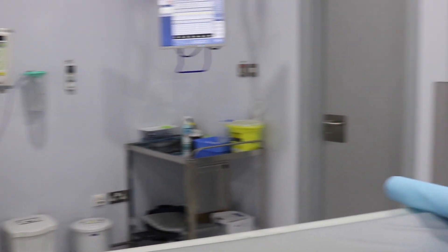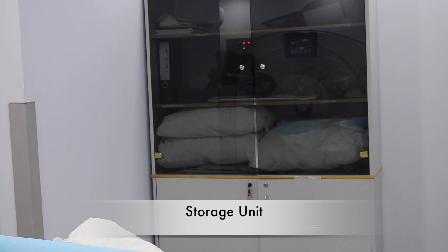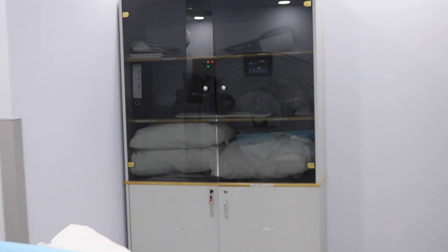As we can see here, the storage unit is used to store any extra pillows. It also has the CT scan machine instructions.